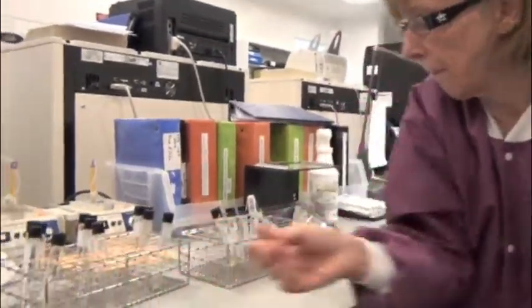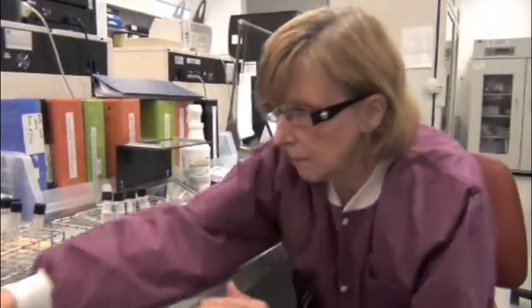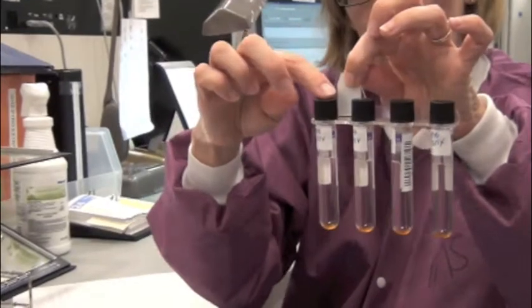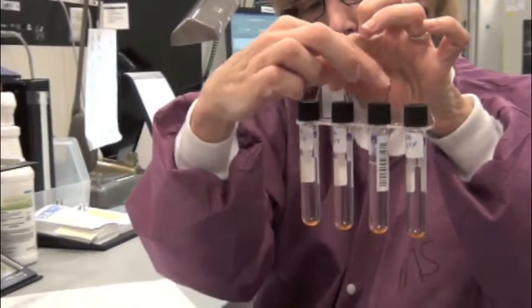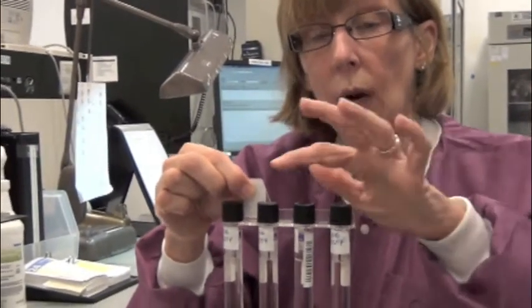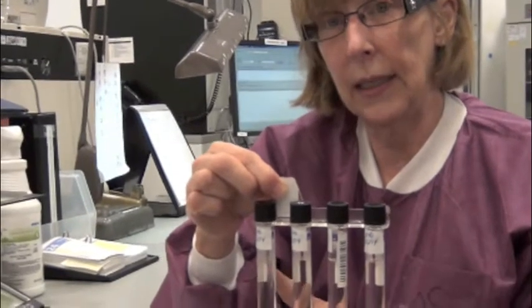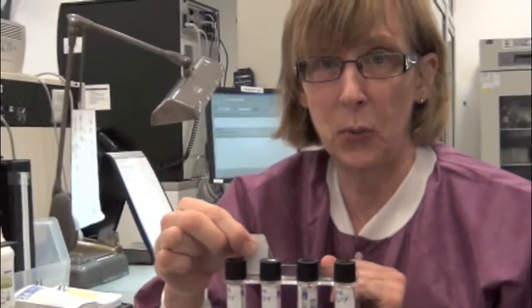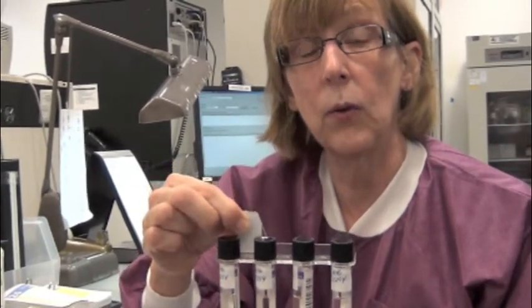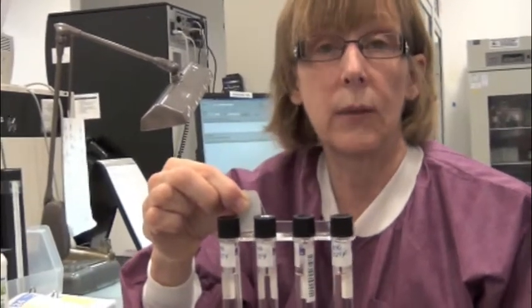I can show you the test and basically what we're doing. This is our MGIT system, and this would be the control. You always have a control. This would be the tube with the INH, rifampin, and the ethambutol at critical concentrations. We would add our working dilution of mycobacterium to each of the drug wells. We would then dilute the working dilution 1 to 100, and we would add an equal amount to the control well. We would then put it on the machine and allow it to read. After we set up the TB susceptibility testing, it takes between 4 and 14 days for the machine to read, and as soon as the control reaches the critical level, then it will read all the drug tubes, and you will get whether it's sensitive or resistant.